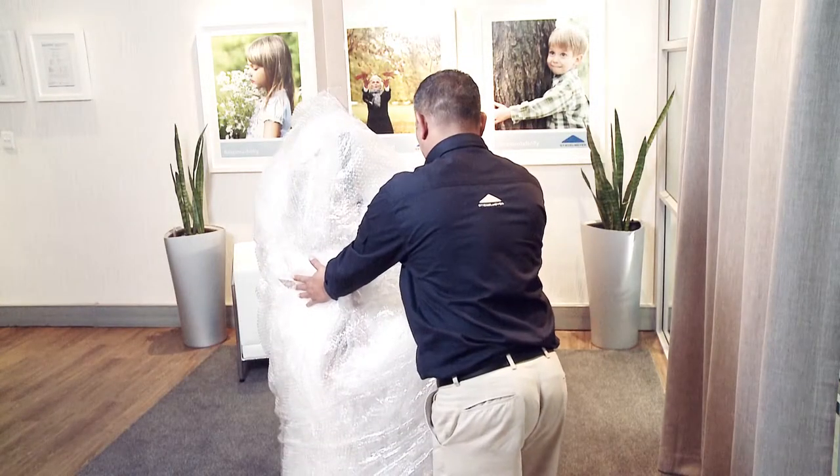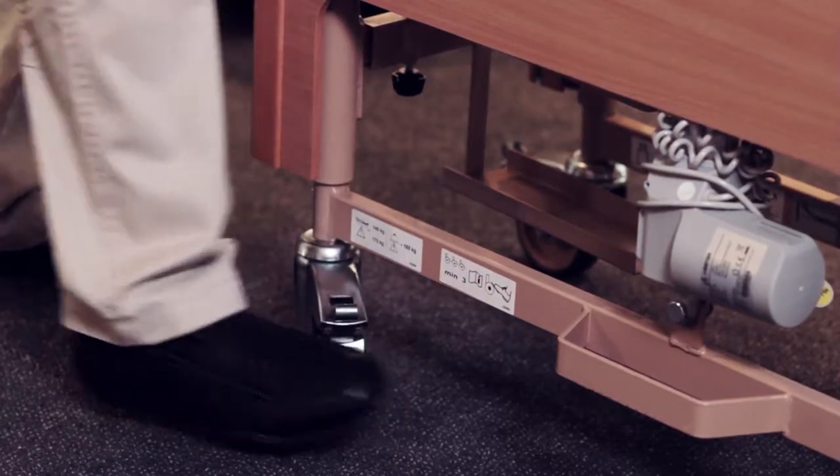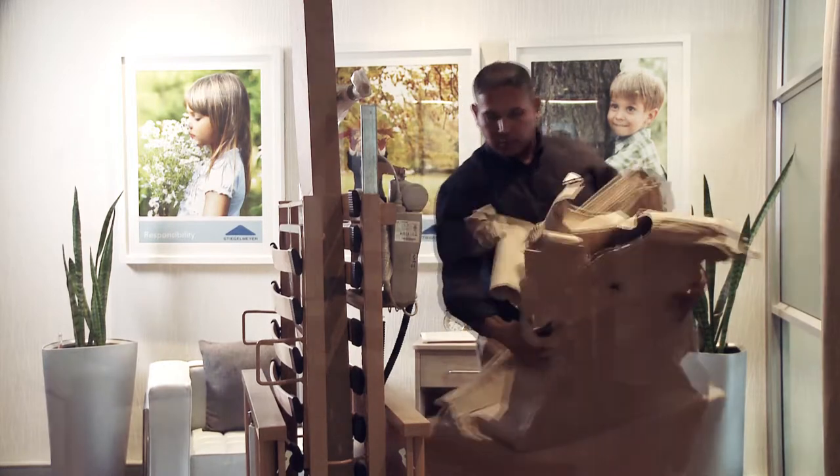First, move the bed to the location where it will be used and remove the transport packaging. Activate the brakes by stepping on the lever located on the caster cover.